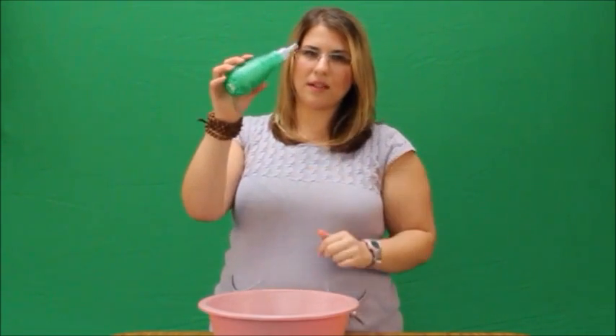It has little bumps on the bottom — I like to think of them as legs — those go down. You wrap your mouth around the mouthpiece and blow. You could do this for three sets of five in any position that you want: sitting, laying in your bed, laying on your side. I'm going to demonstrate right now.